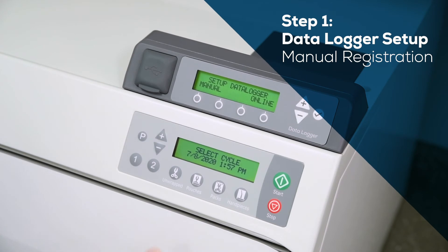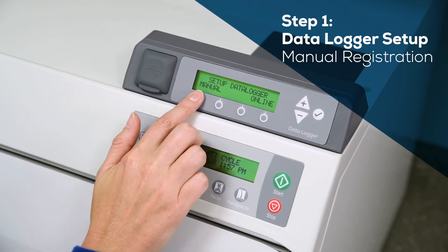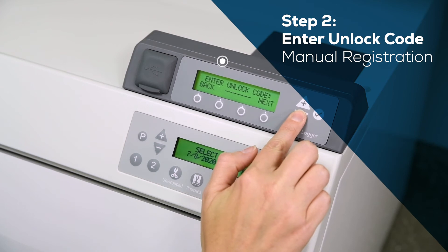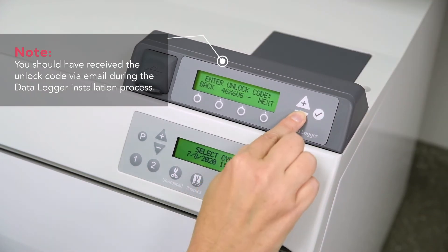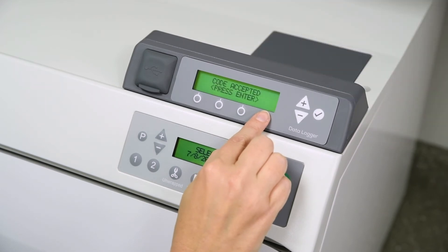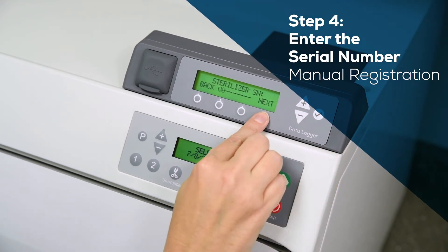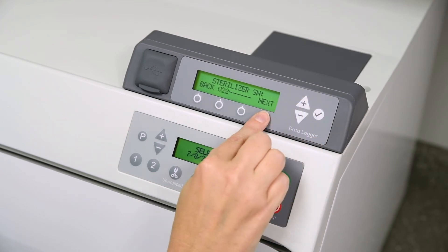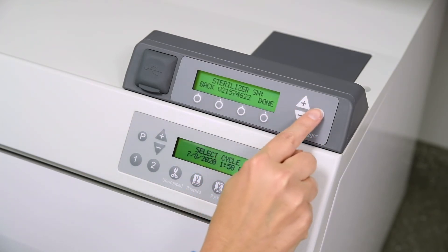Select the manual method of setting up the sterilizer data logger. Using the sterilizer data logger touchpad, enter the unlock code. Once the unlock code is accepted, press Enter. Enter the sterilizer serial number by using the plus, minus, next, done, and back buttons.